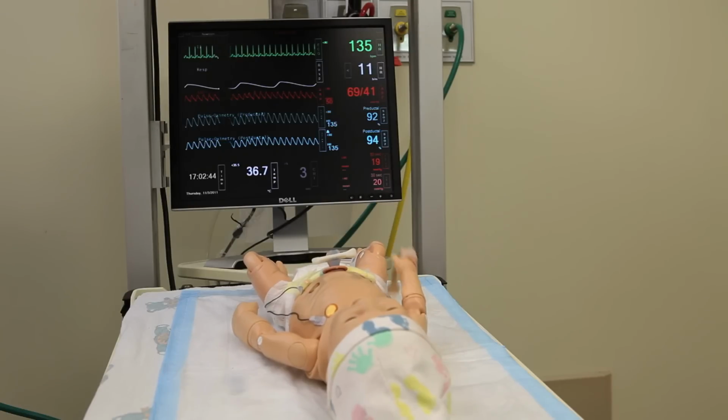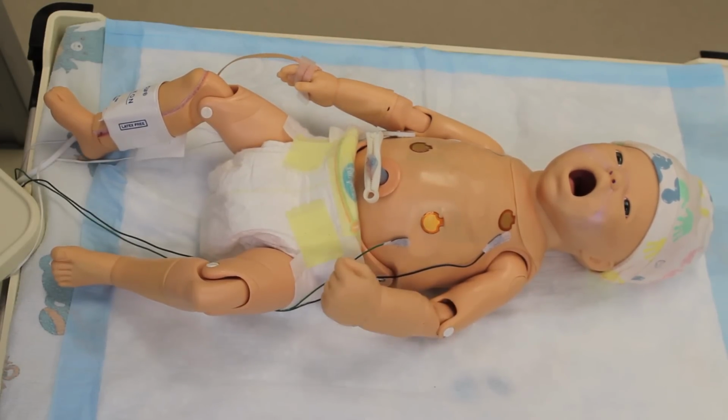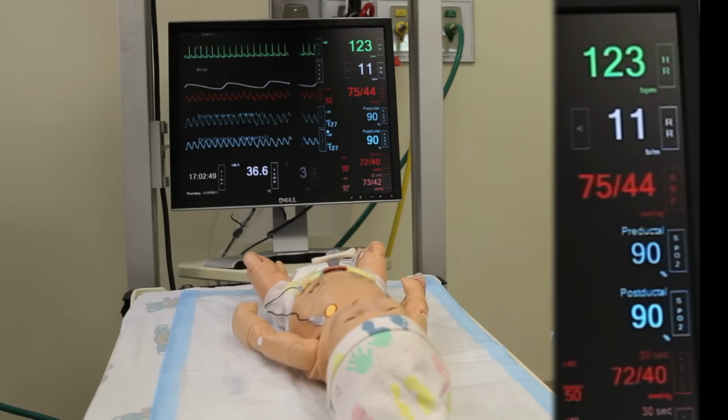The movement that we see now are seizures. I want you to realize that in the S.T.A.B.L.E scenarios, the baby is programmed to have physiologic correlation when he has a seizure. Take a look at the monitor. What you see here is that the baby during a seizure is going to have his heart rate go down, his saturation is going to drop, and his blood pressure is going to go up.